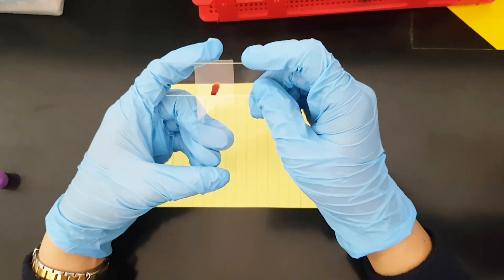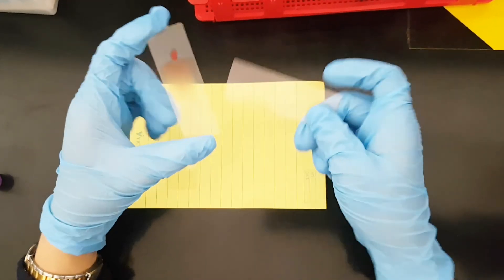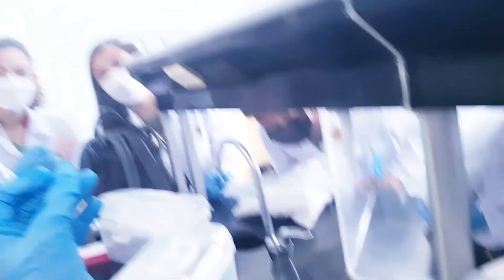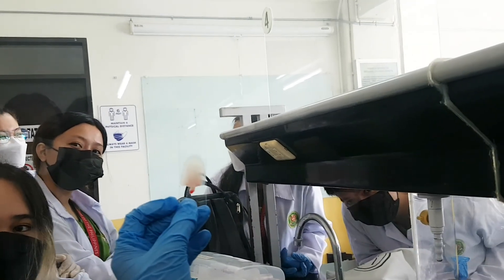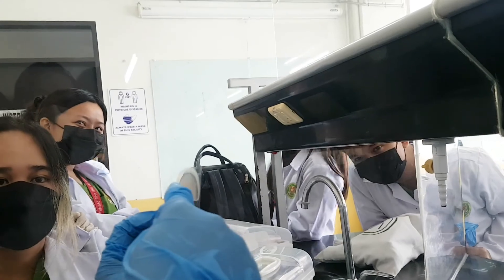Dahil dyan... Ayan na. Nag-slide na siya. Touch nyo hanggang baba. Dapat ito yung matatouch hanggang dulo. Pag masyadong makapal, mapapansin nyo mamaya na kapag inyong in-stain na siya, matatanggal yung makapal na part.